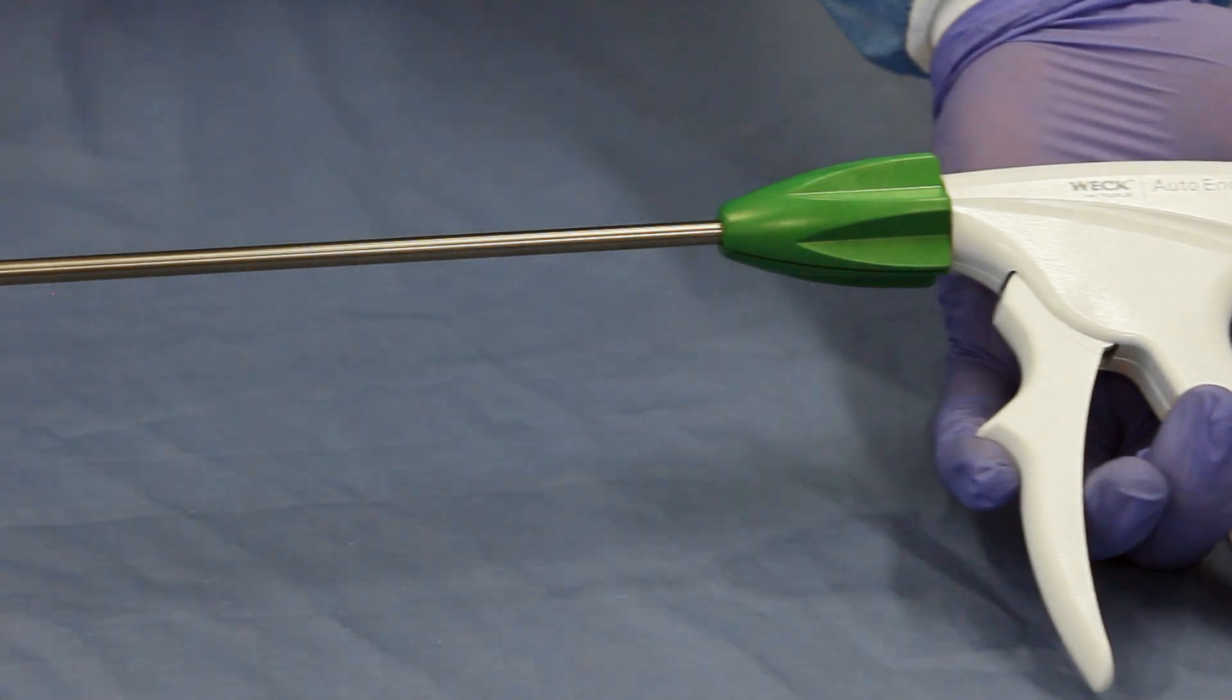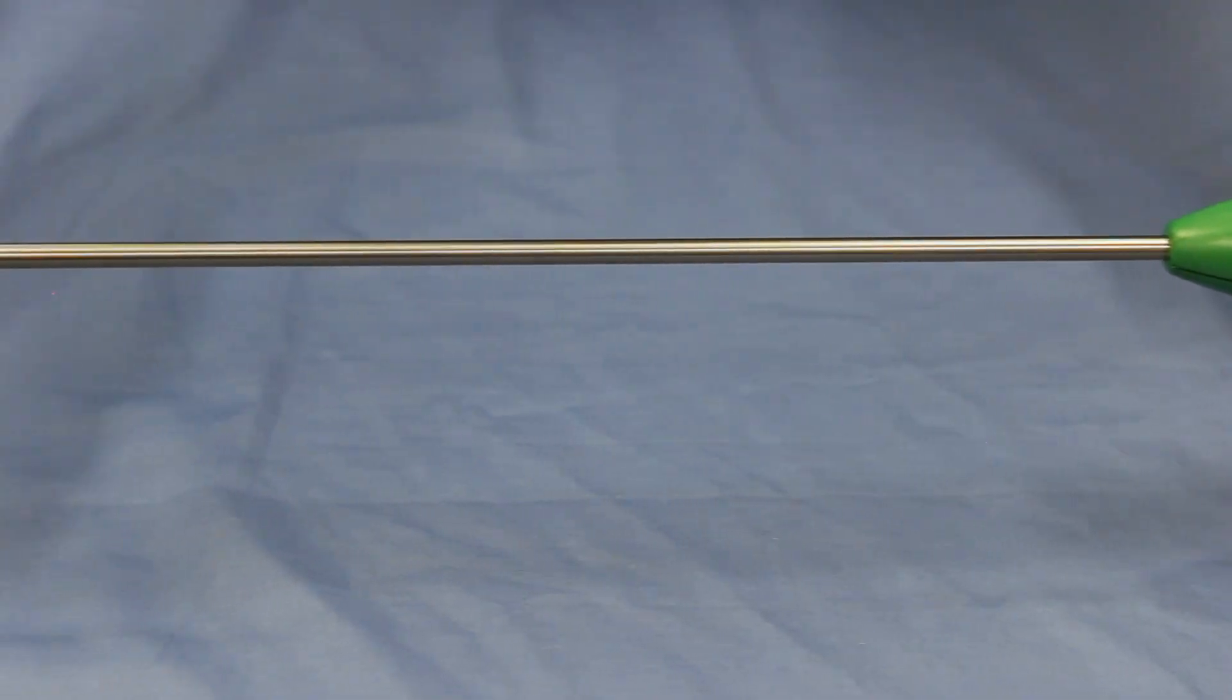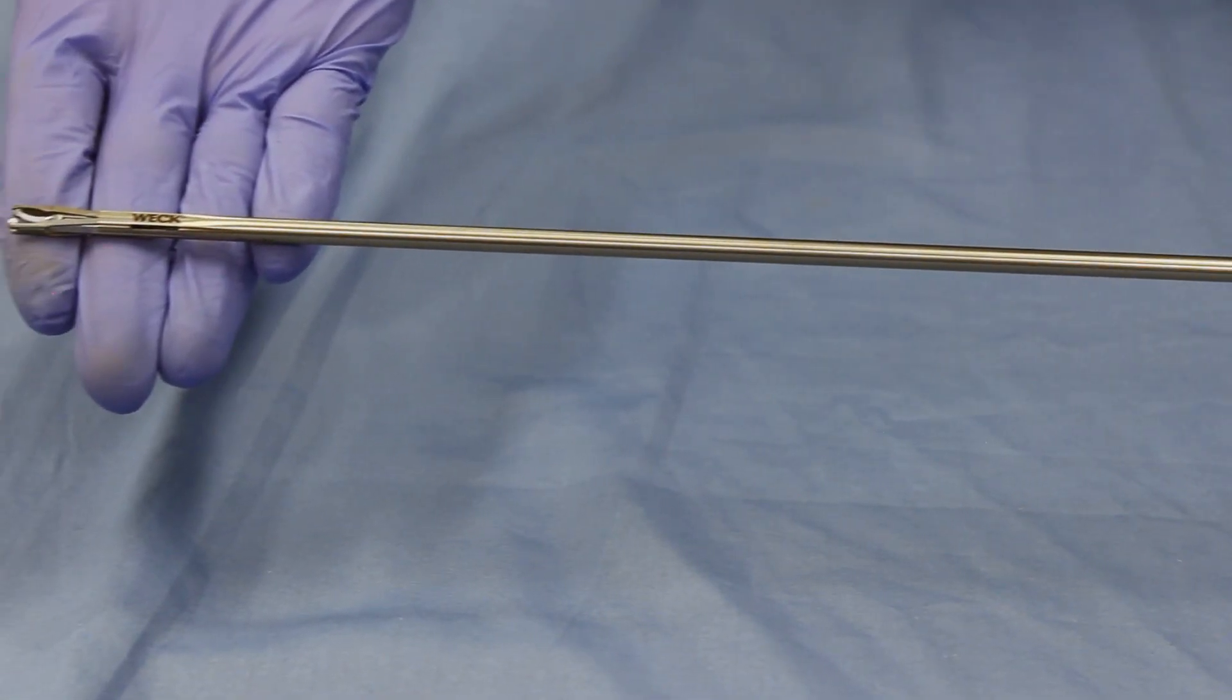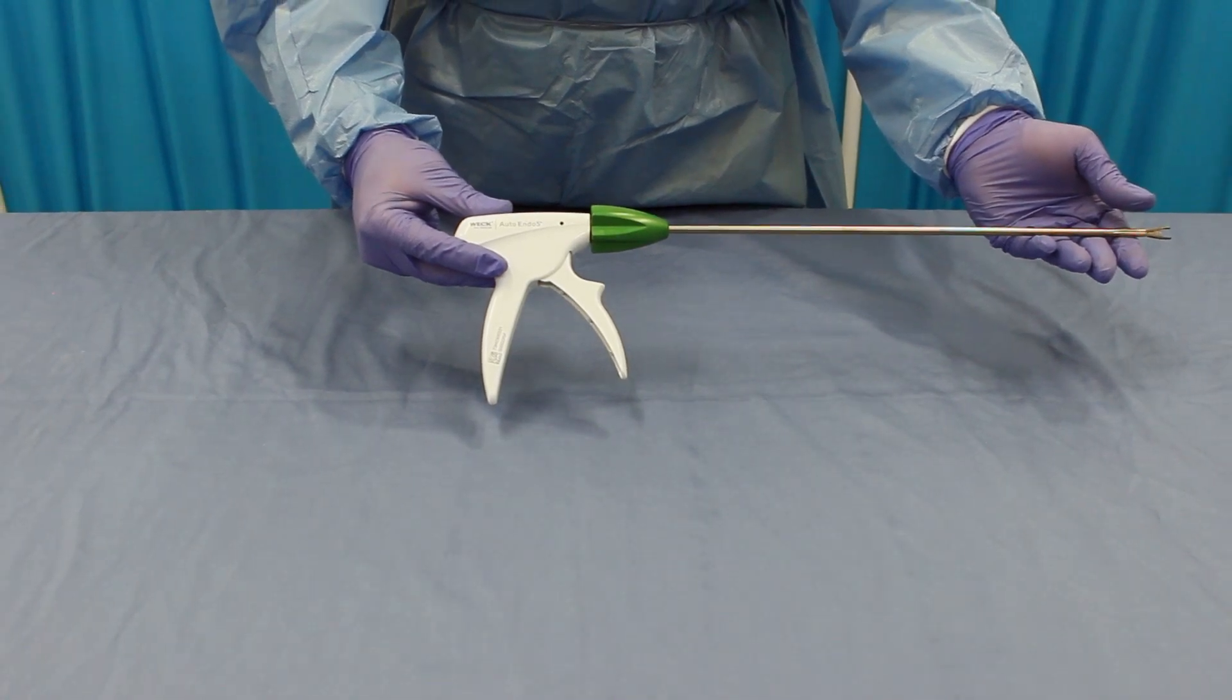The Weck Auto Endo 5 Automatic Hemolock Clip Applier, providing confidence and clip security with the efficiency of an automatic platform.